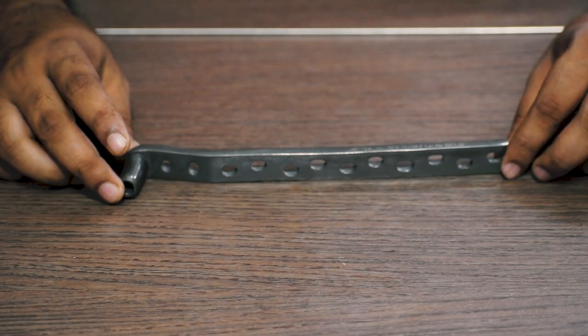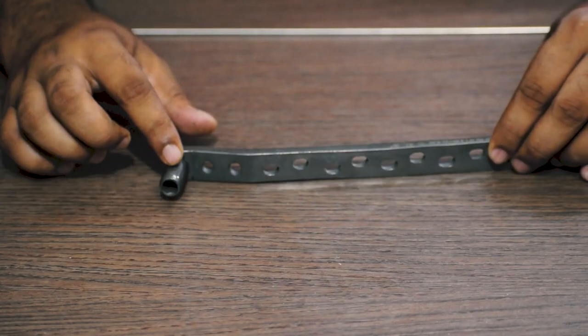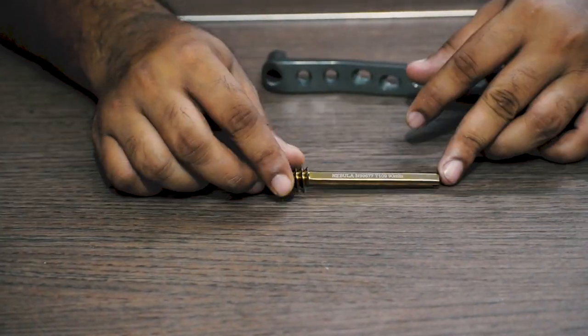Let us discuss the procedure of fixing a dynamic condylar screw plate and all the implants and instruments used for it.